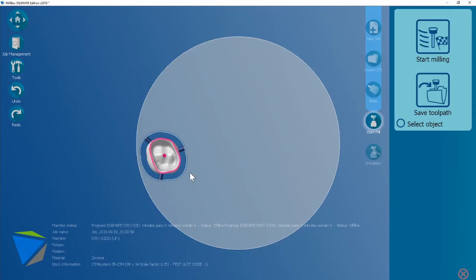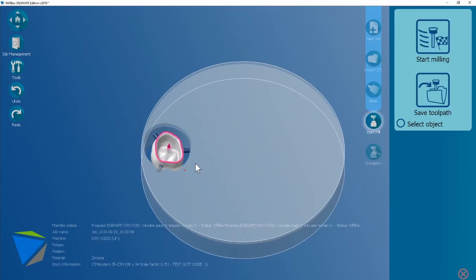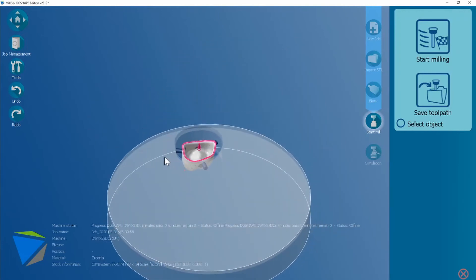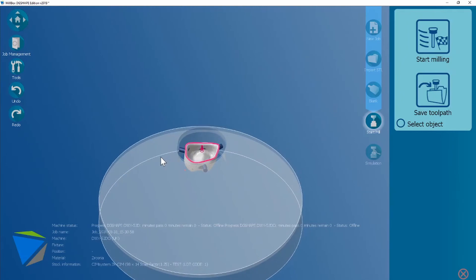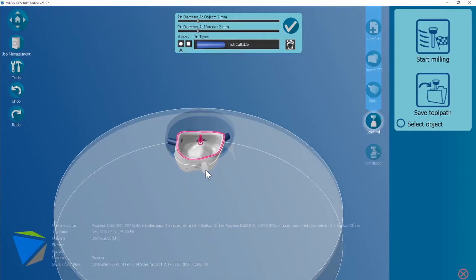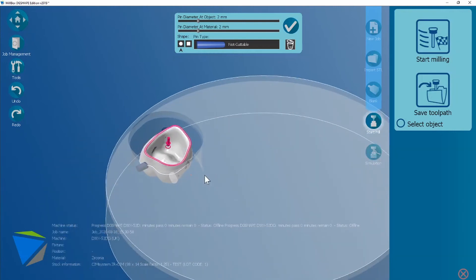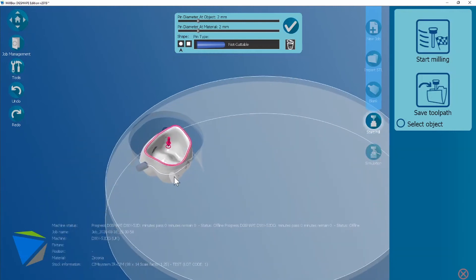This makes life a little bit easier to determine whether you want to move any of these connectors. This one here I don't want on a contact point so I'm going to select it. It's going to turn grey and then you simply drag it along this equator line. If you move it above or below the equator line you're going to give yourself a chance of creating an undercut.